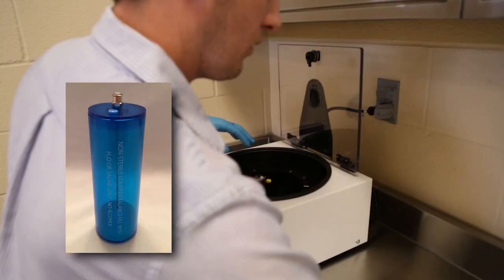This can be achieved by using the blue 60 ml counterbalance positioned in the green centrifuge bucket opposite the device. Water may be added to this counterbalance to adjust for any variance in the weight of the blood volume placed in the first device.